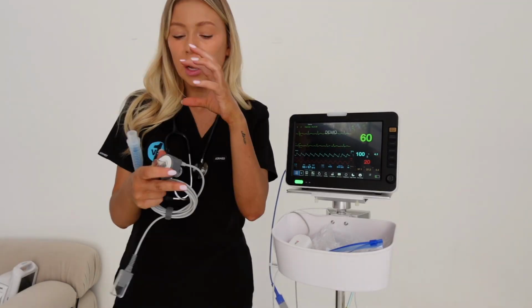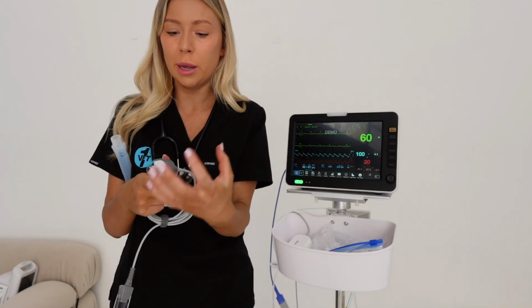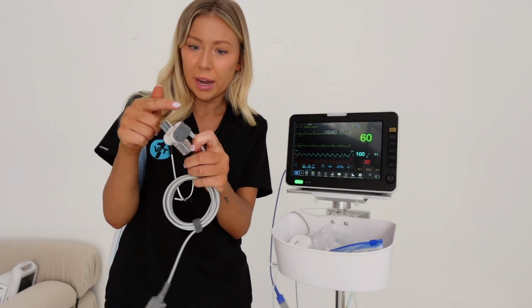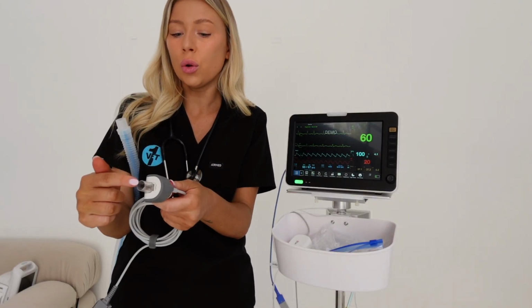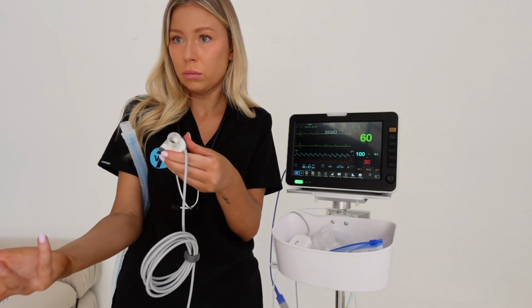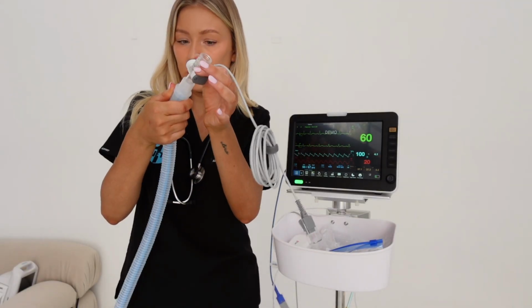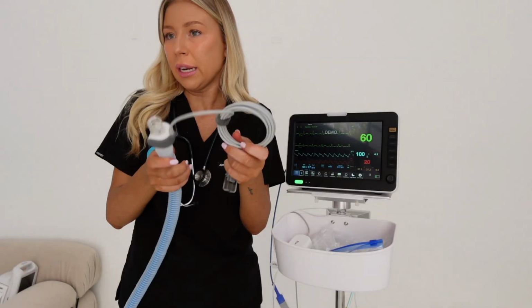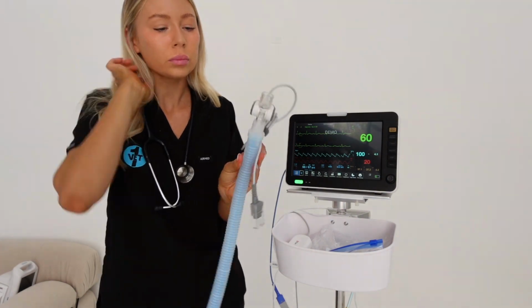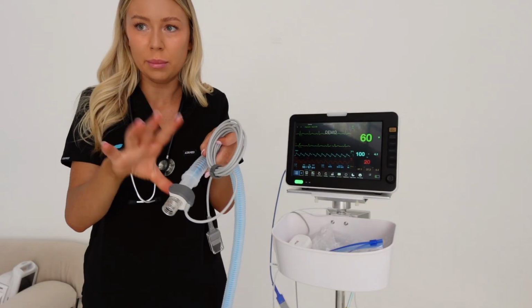With a mainstream capnograph, the component that's reading the patient's end-tidal CO2 is close to the patient. It means it's a part of your breathing circuit pretty much. The computer component, the reader, is here, and it's going to attach to my breathing circuit, and then the other end is going to attach to my endotracheal tube, which is tubed into the patient. I would have this ready in your surgery, all attached to your breathing circuit just like this, prior to anaesthetising your patient. So when you bring the patient in, hook them up, it's all reading, it's all ready to go. You just attach it on like this, and that is your mainstream monitoring component right there.